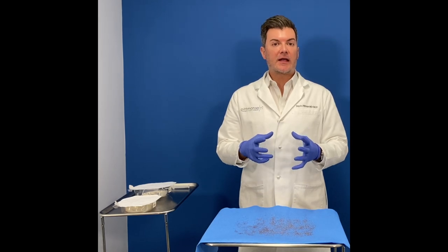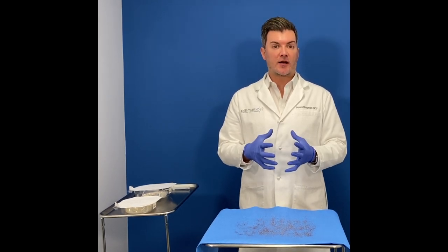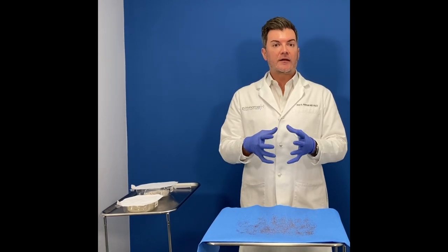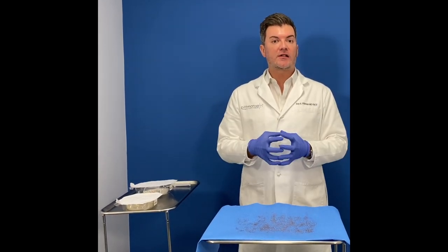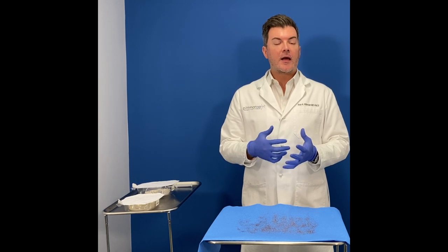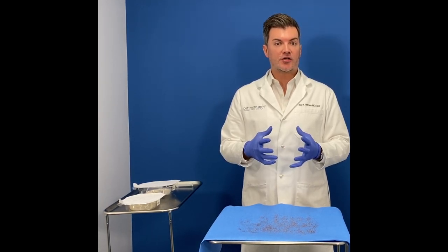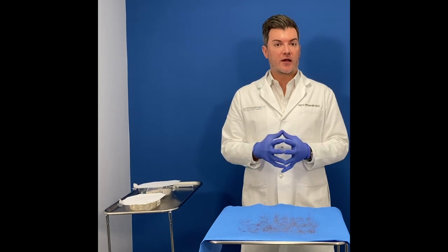Well, the reason is that the implant has an electrostatic charge on it. So when we open the package with a dry implant, that electrostatic charge draws particles in the air onto the implant. By wetting the implant, we actually break that electrostatic charge so particles in the air aren't drawn to the implant.